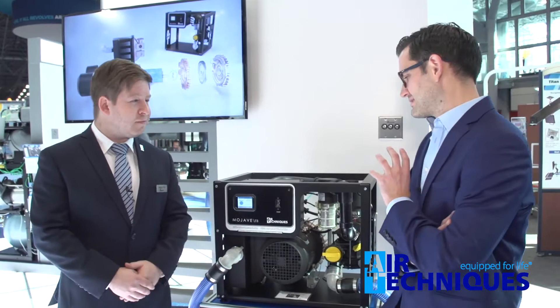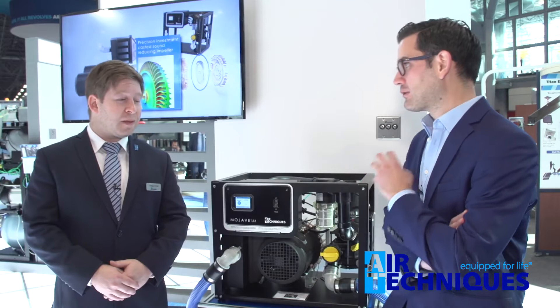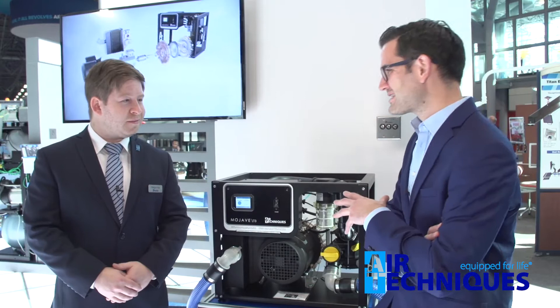So Gregory, dentists probably don't pay enough attention to their suction systems until they start to lose power or go down. For someone that maybe hasn't looked at their suction system in the past 10 to 20 years, can you give us an update on how this critical part of our practice functions and what features we should be looking for if we're going to invest in a new one?